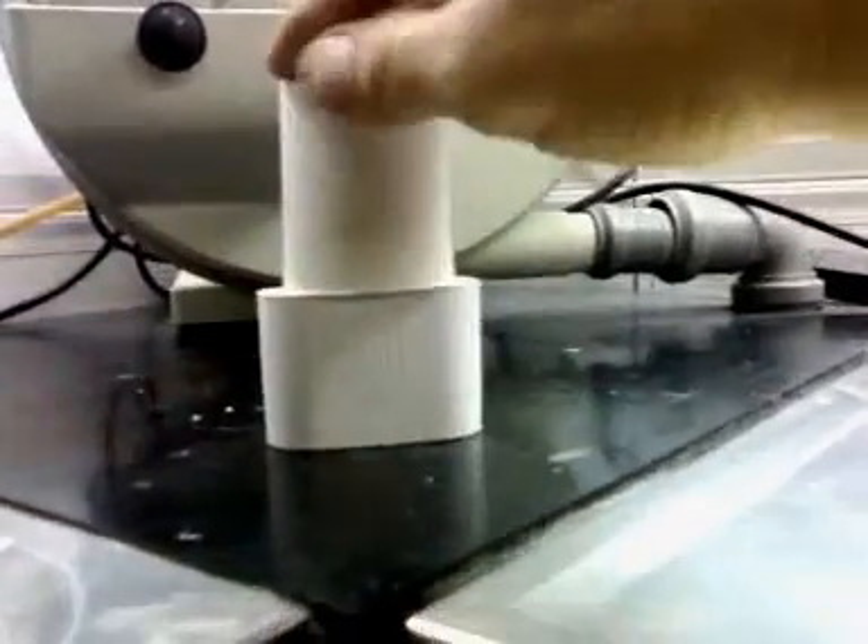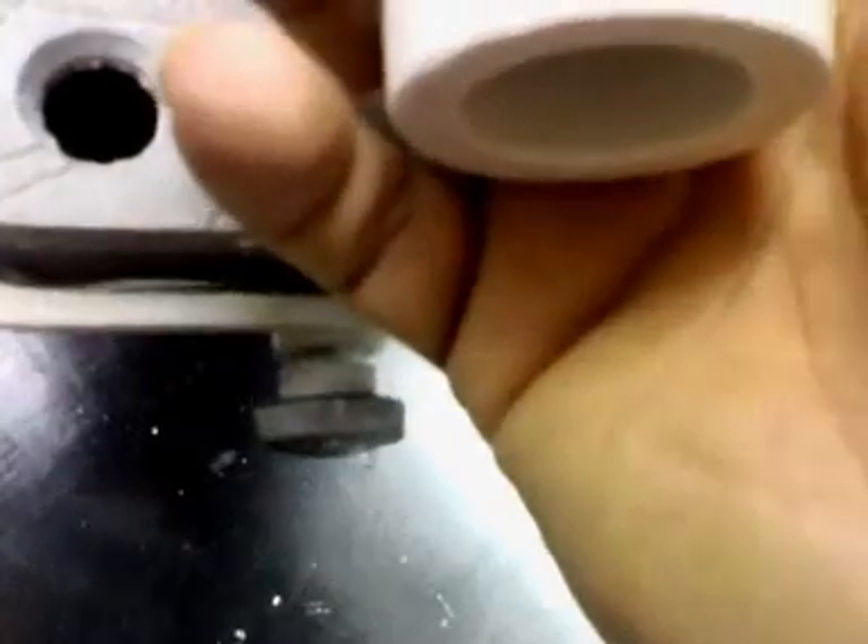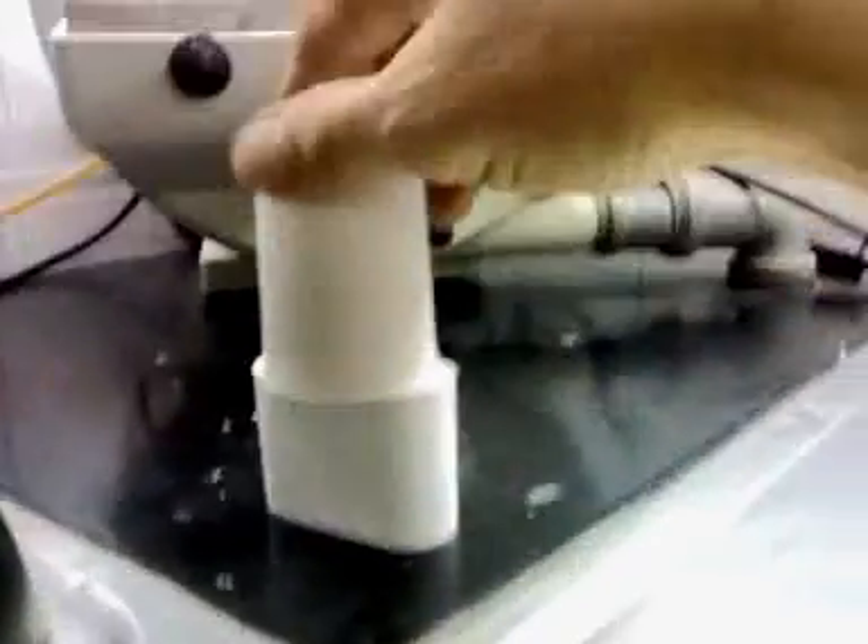I would say it's okay. We can turn off our disc and we're going to use the small oven because we have only one ring. We're going to burn it out and we put it upside down inside the oven this way. You see how it fits perfectly.